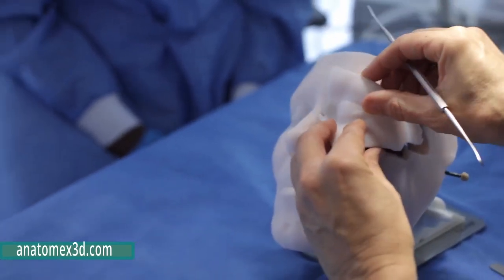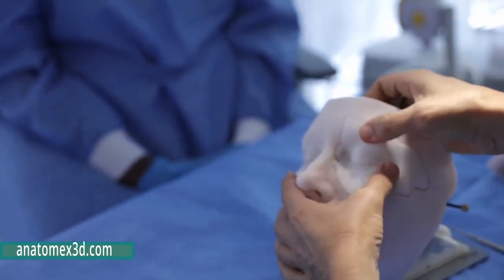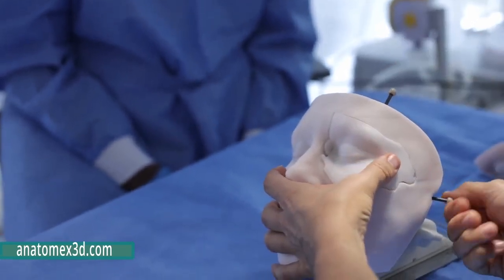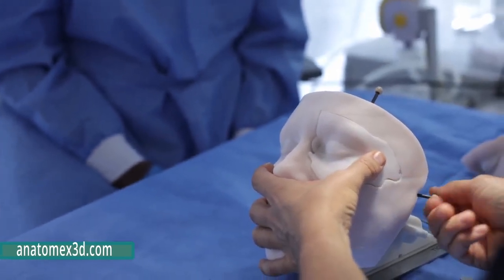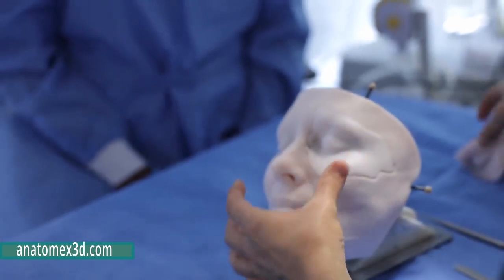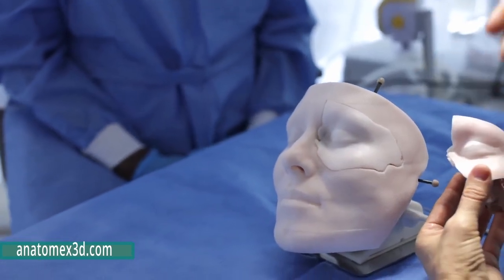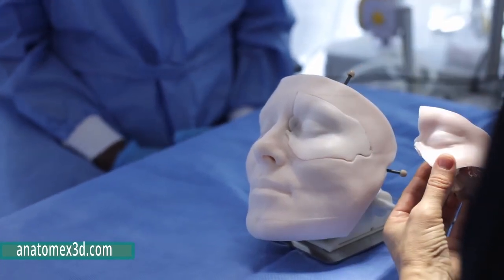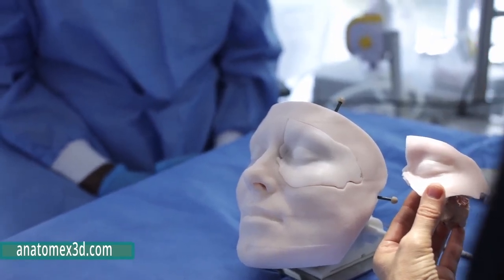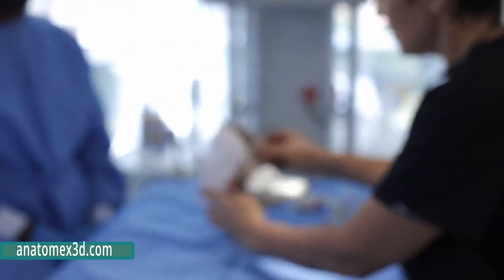So if I put this model in, kind of slip it in like this, and you can tighten it, and this allows you to now drill this model, operate on it, and practice your surgery. And we've got different models. Eventually we will have different pathologies. You'll have a Sternberg canal defect, you'll have a sphenoid wing meningioma, we can have Meckel's cave tumors, we can have a different kind of anatomy.